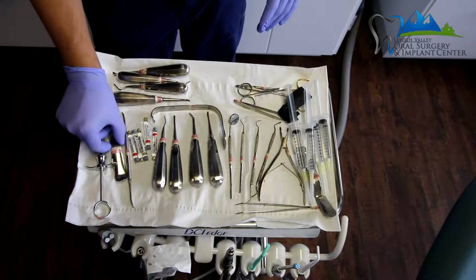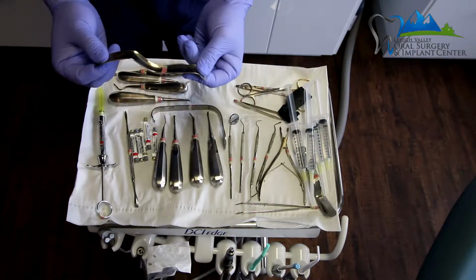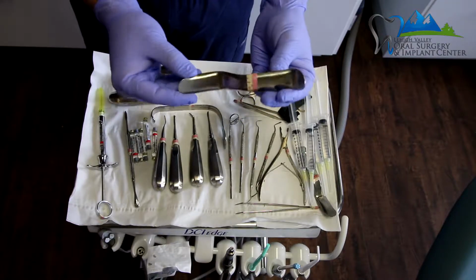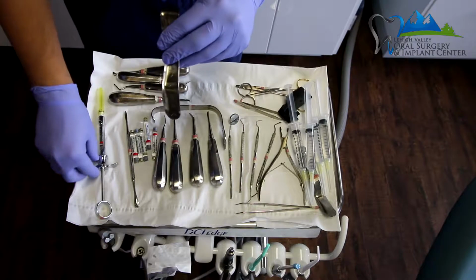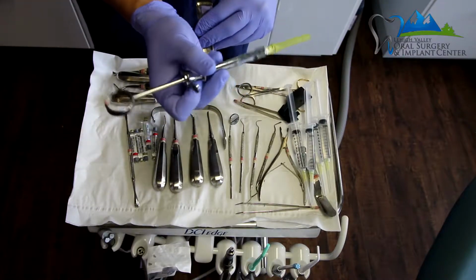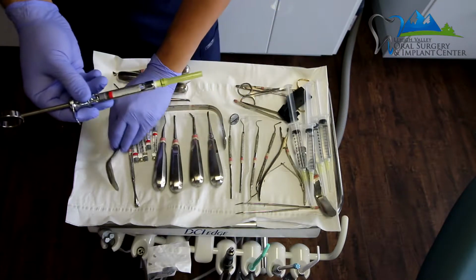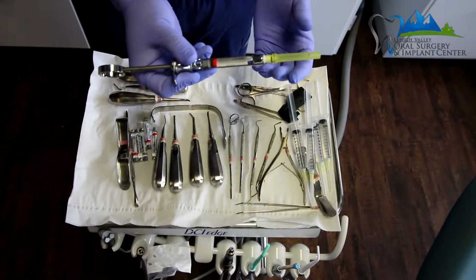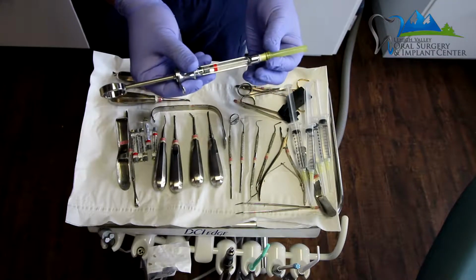So the first thing that I always utilize is a Minnesota retractor, which is just a bent retractor used to retract the cheeks. So we'll use a Minnesota to retract the cheek, and then we'll use the syringe to go ahead and place the local anesthetic. I typically, for a healthy patient, like to have lidocaine 2% with 1 to 100,000 epinephrine placed in the syringe to begin with.